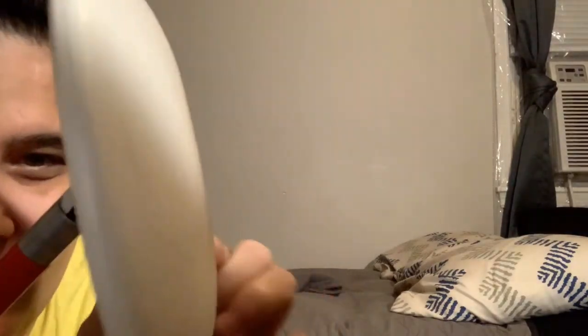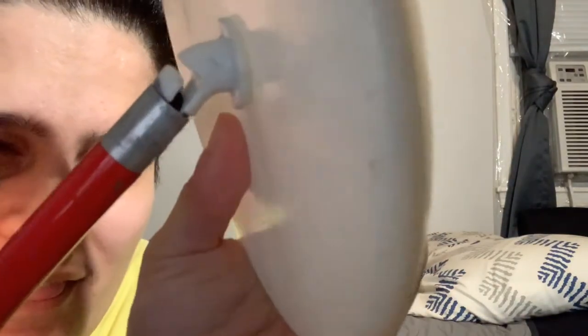There's the disc tip — it's the one I showed you, the one I have. This is not strong; there's a hole somewhere in here. I'm guessing it's designed so that water doesn't stay in, but you can squeeze this, and the other ones don't do that — the other ones are made of a harder material.